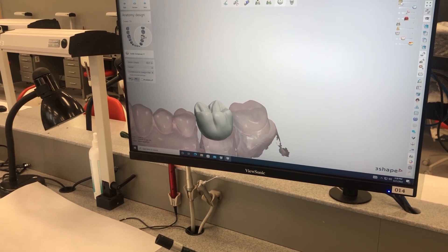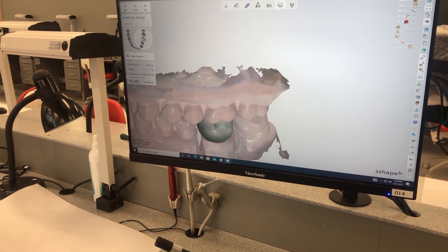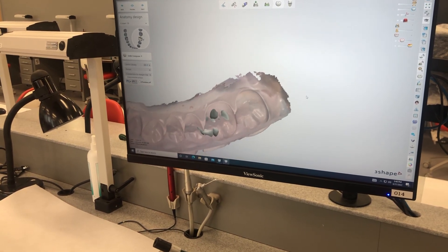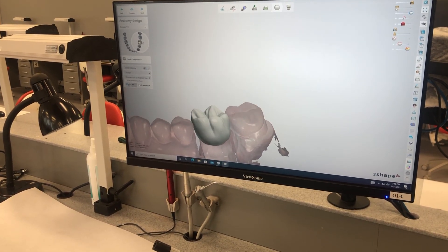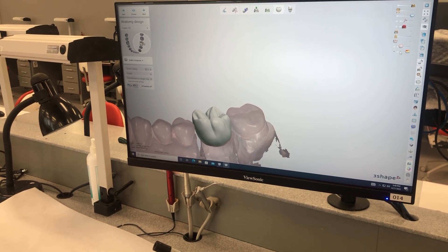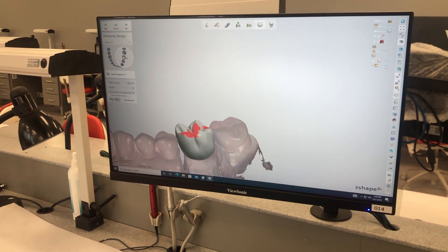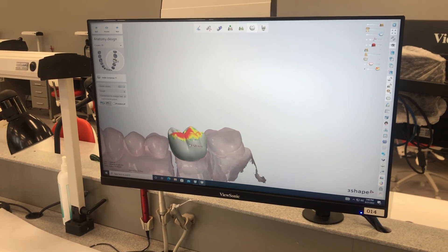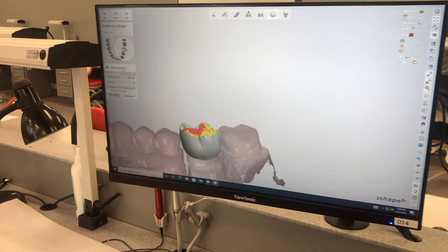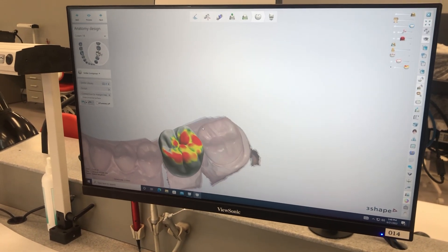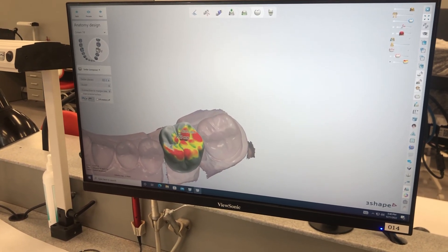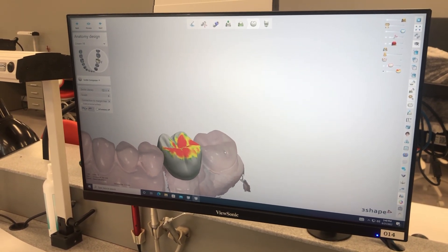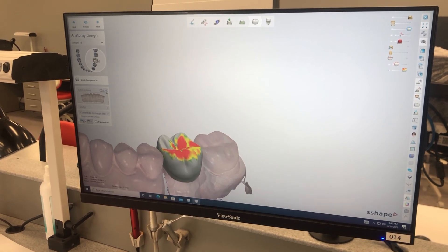Up here in the right-hand corner is where we toggle everything on and off. We can toggle our maxillary arch off and you can see how much is showing through there. We can also toggle on the contacts to see how heavy our contacts are — obviously very heavy, so we want to make some adjustments. Now the other thing I'm looking at is our smile library. This is a very defined crown and this is a pretty plain crown, so we're going to go back into the smile library.